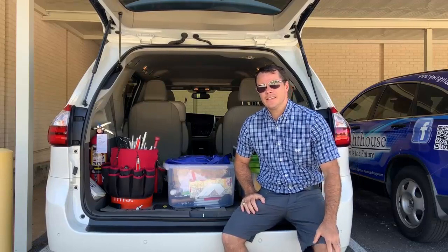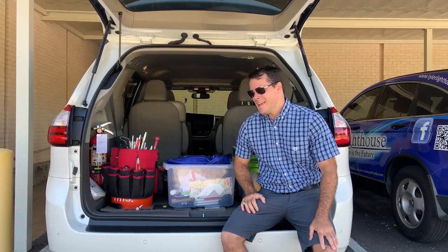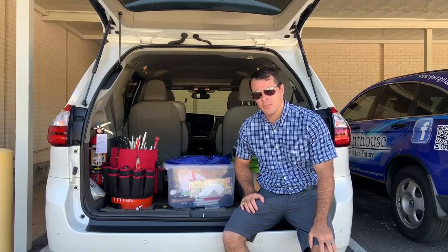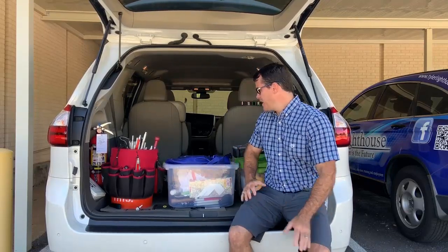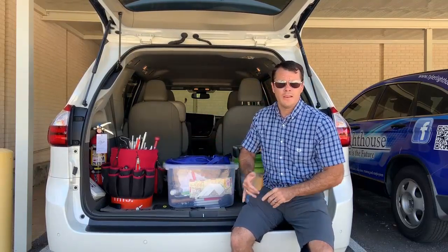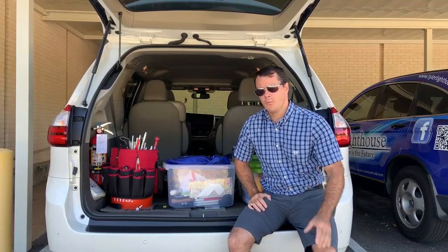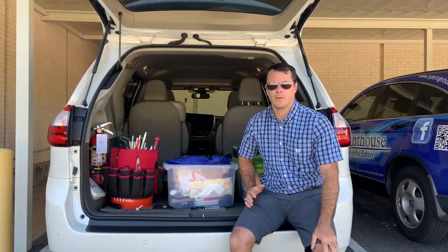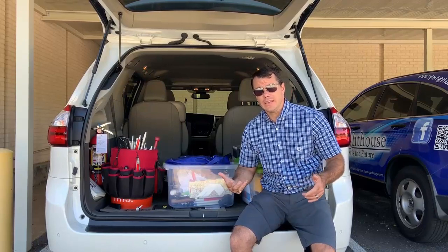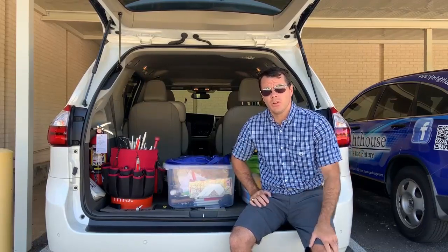Hey, what's up guys? This is Jerick Ist at the East Texas Lighthouse for the Blind here in Tyler, Certified Orientation Mobility Specialist. I wanted to talk to you guys a little bit about cane tips today. I wanted to show you guys the different setups that I've got in here that helped me when I travel, since I do a lot of itinerary work with different school districts and I'm also out and about with clients. Let me know what you guys think — if you do something different, put some comments down below. Let me know how you operate, how you stay organized, things that you do as well.